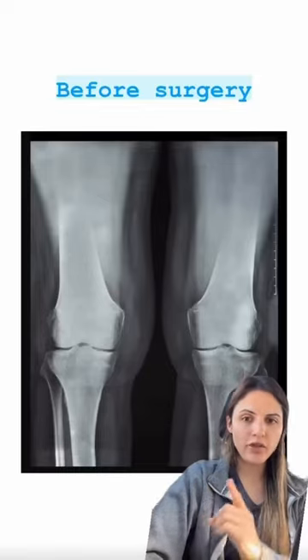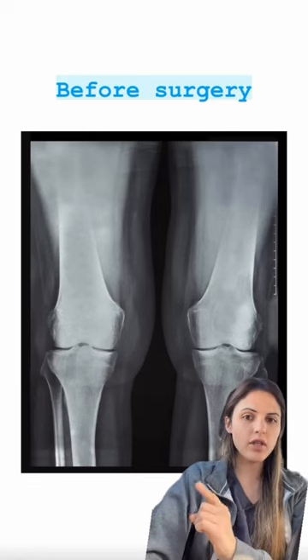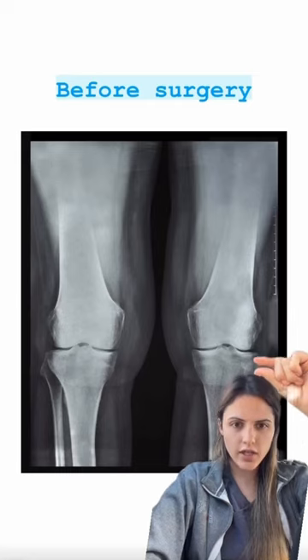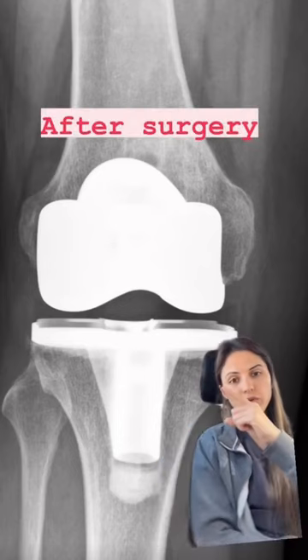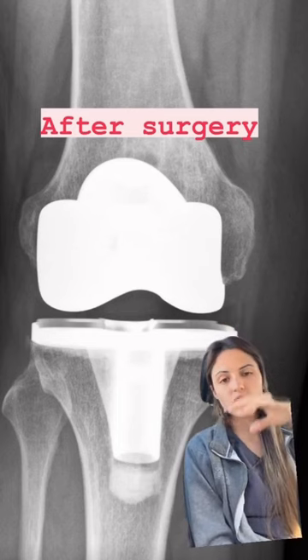Here is a reason why your knee replacement feels so stiff. This is your old arthritic knee — do you see how tiny the joint space is right here? There's like the smallest amount of space in between the bones. Now when you get your new knee, this is what it's gonna look like. Look at the space in between the bones right here — it just got so much bigger.